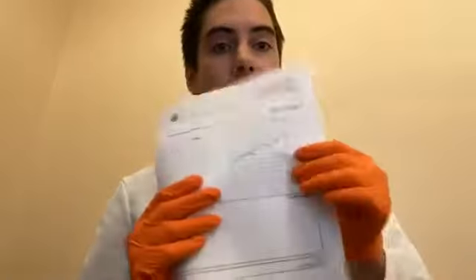Good afternoon, friends of Hearing Healthcare Myrtle Beach. My name is Mac, and today I'm broadcasting live from Conway, South Carolina, one of our hearing healthcare offices. What we're going to be talking about today is what does an audiogram — which is the diagram of your hearing loss — look like for someone with normal hearing versus someone with a hearing loss. We're going to be looking at two fictional patients, two brothers named Mr. Joe Test and Mr. Jim Test.